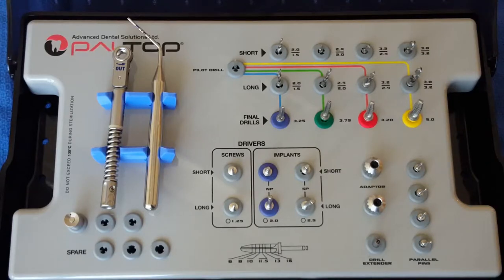I am Dr. Michael Klein, and this is a tutorial on the use of the Paltop Premier Surgical Kit.